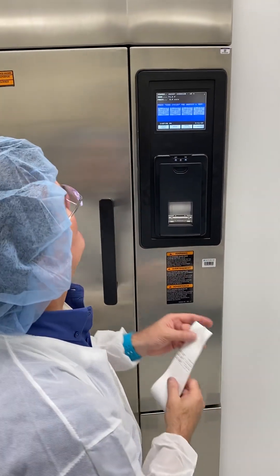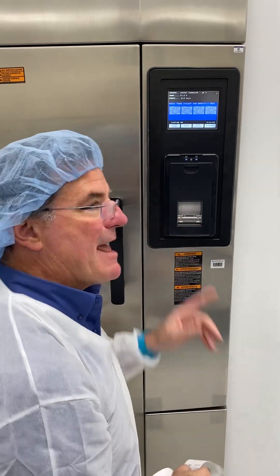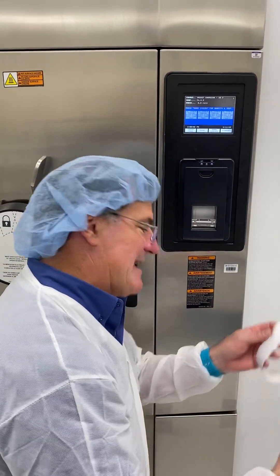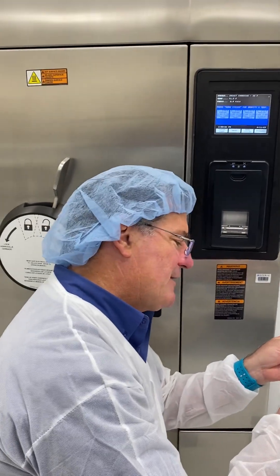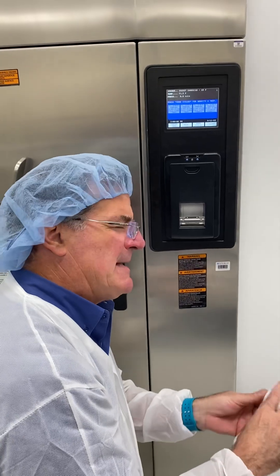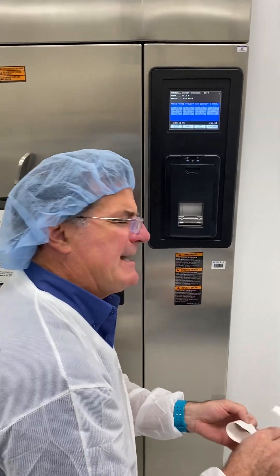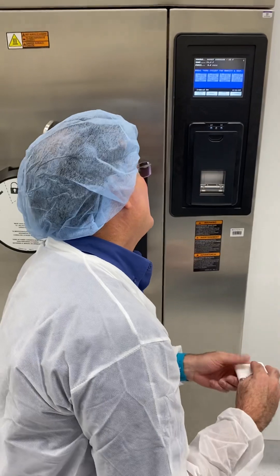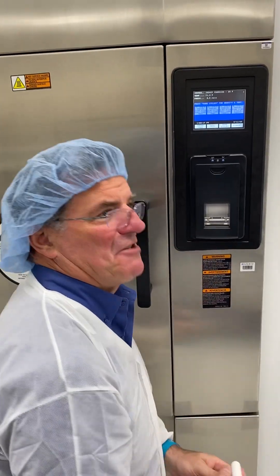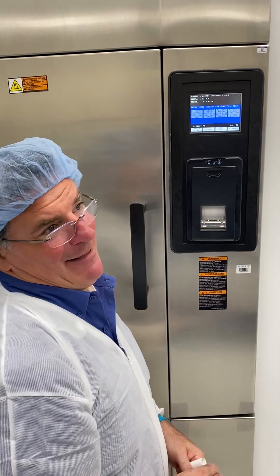You're going to get a nice print. Let's say you ran out of paper — now I don't have my sterilization record, and I saw that it was pink on the edge like at the grocery store. I got distracted and never got a chance to swap out the paper, and now I don't have a sterilization record.